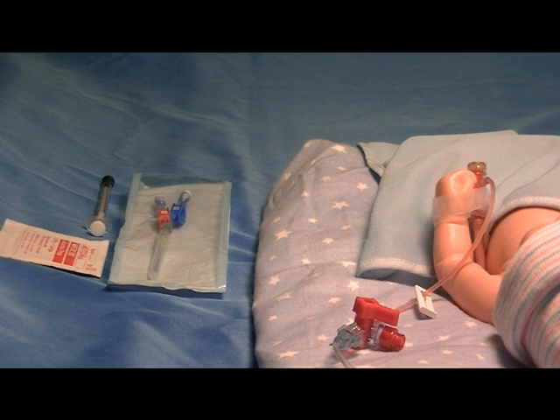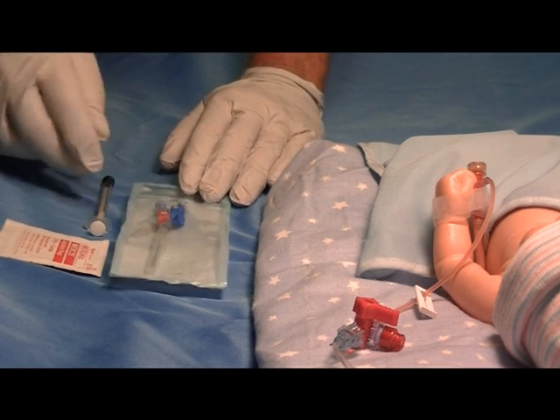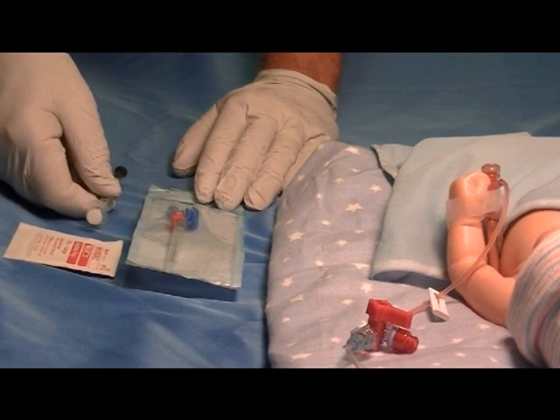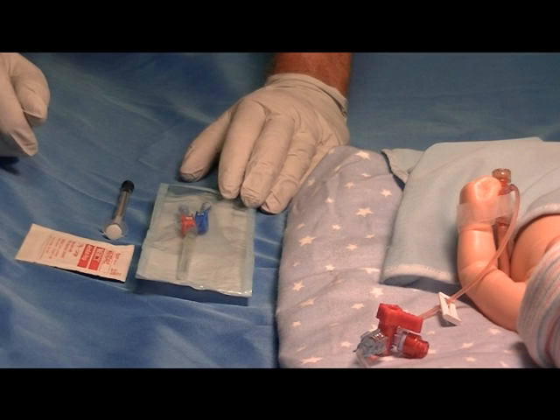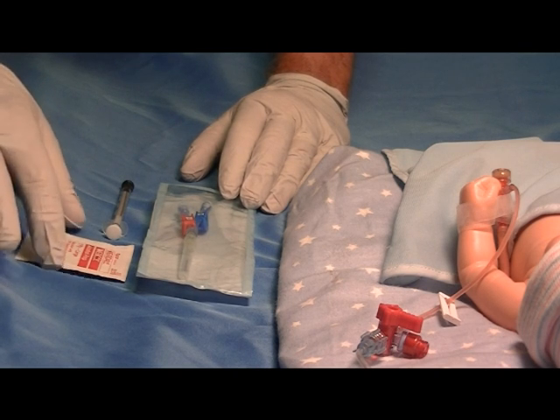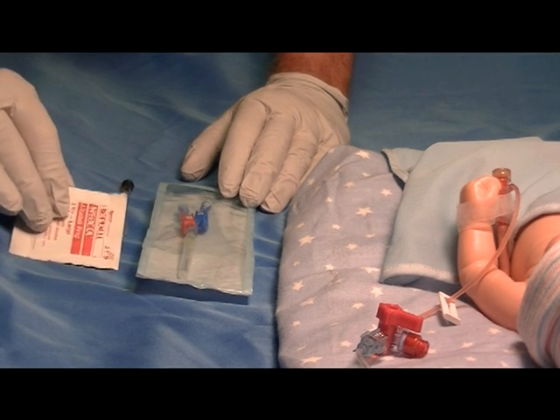The first thing you need to do is gather the appropriate materials, which is the Humi Microdraw device itself, a 1ml heparinized aspirating blood gas syringe, and the appropriate prepping agent for the T-connector.